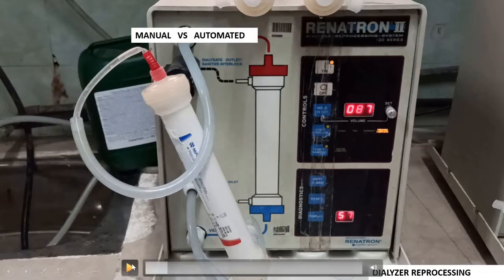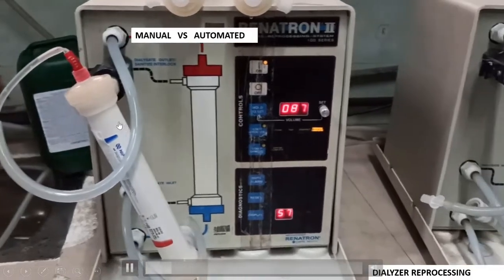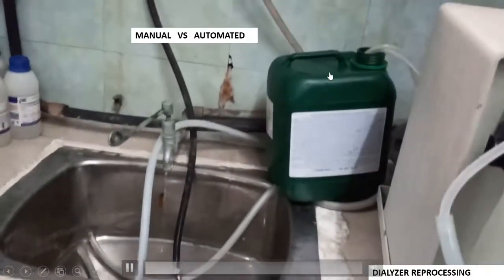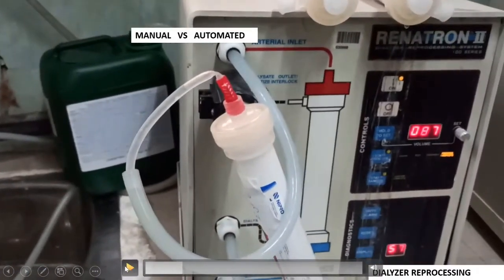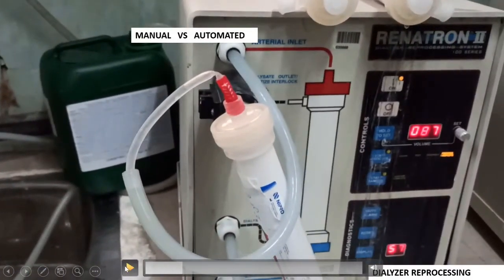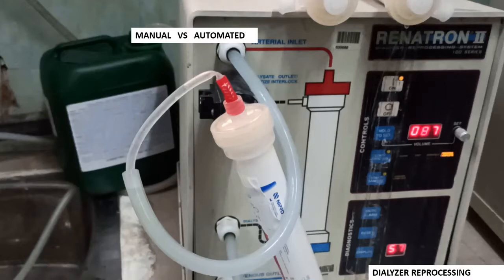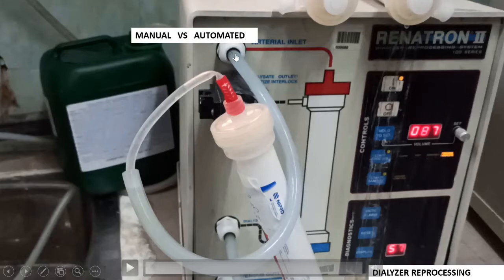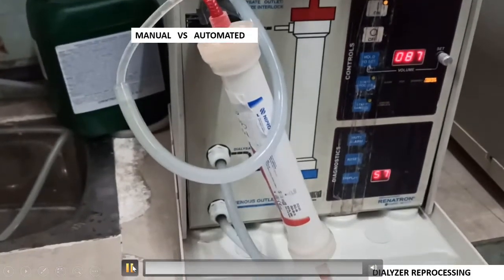Now we will see the parts of the machine. This is the main machine body. It has to be connected to the disinfectant. The can contains renaline solution, which is the disinfectant. Renaline is a trade name which contains hydrogen peroxide plus peracetic acid. This is connected to the machine, which will suck the solution in and deliver it to the dialyser, where it acts as a disinfectant.